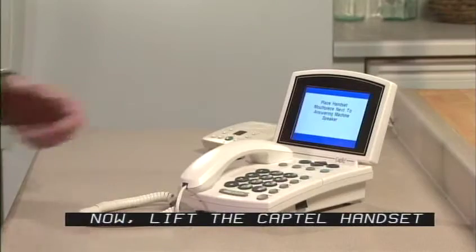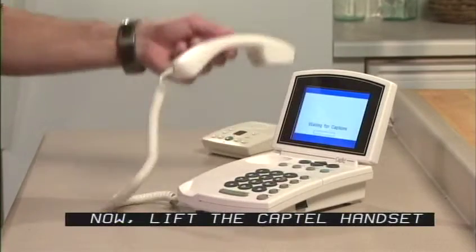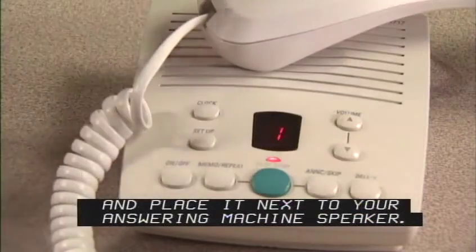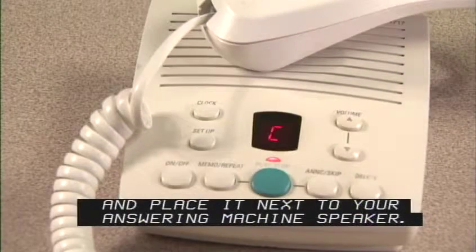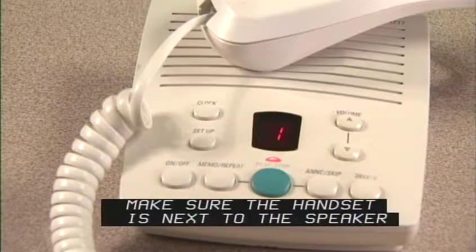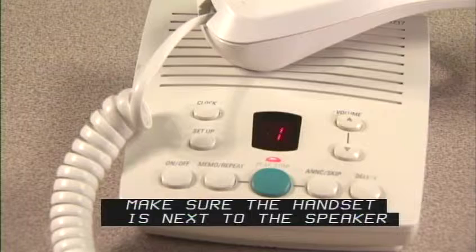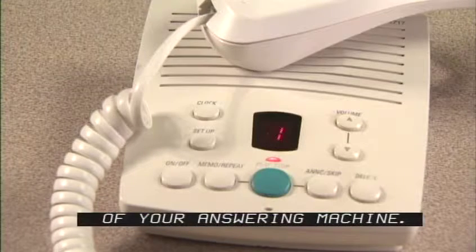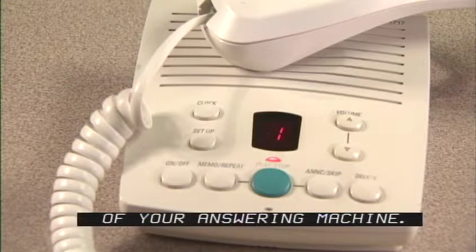Now, lift the CapTel handset and place it next to your answering machine's speaker. Make sure the handset is next to the speaker of your answering machine.